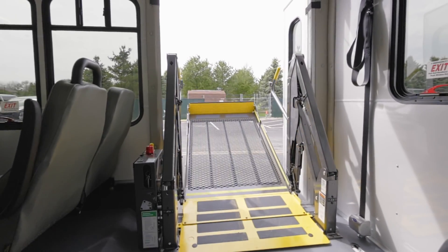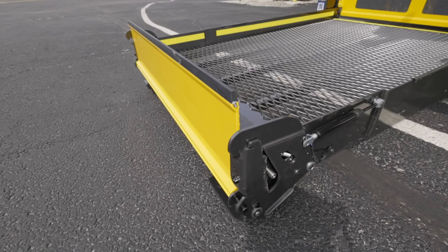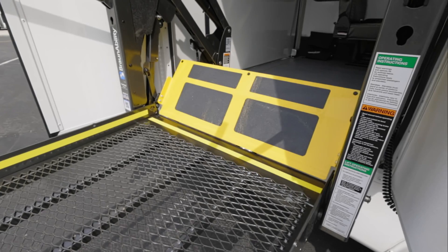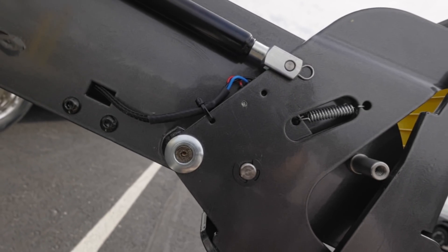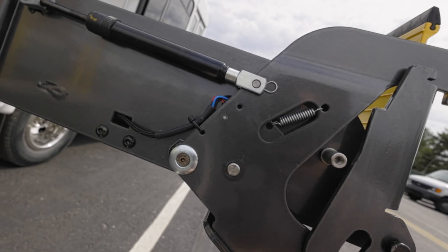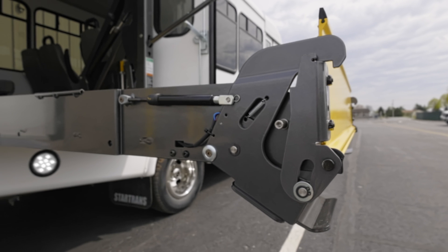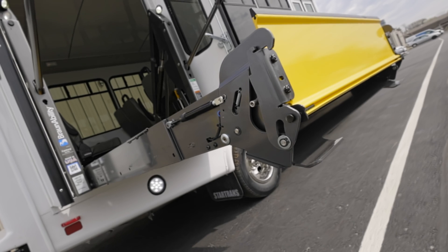Note that there are a few features for safety built into the lift to minimize any potential dangers. Your outboard and inboard barriers are short metal flaps on either side of the lift platform, acting as small ramps or transitions from the lift. However, they are also wired with switches and sensors that, when disturbed, will disable lift operation to prevent damage or injuries. These barriers must be completely folded up for lift movement and only unfold when reaching the end of its full movement, making sure that whatever is on the lift stays on and stays safe.